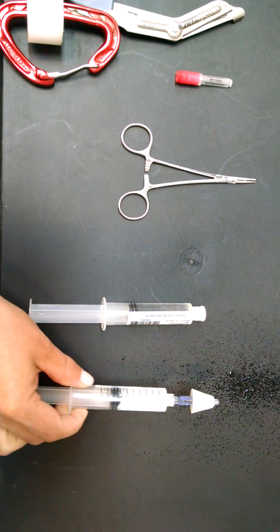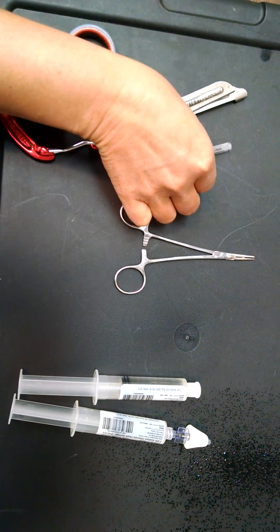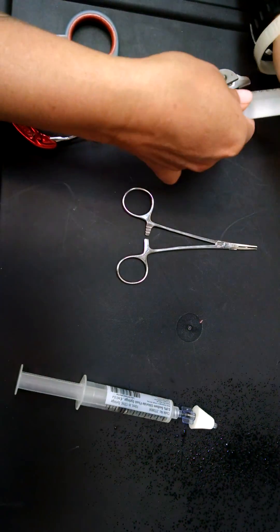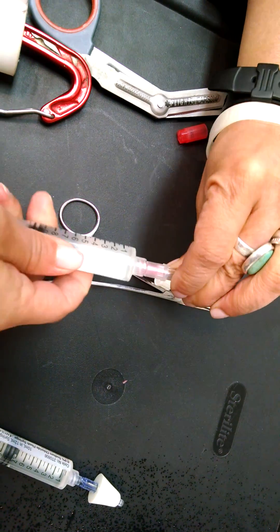See this here. And what we're going to do now is take a 25-gauge needle and make a very similar type device using this 25-gauge needle only. So we're going to go ahead and load this on our syringe.